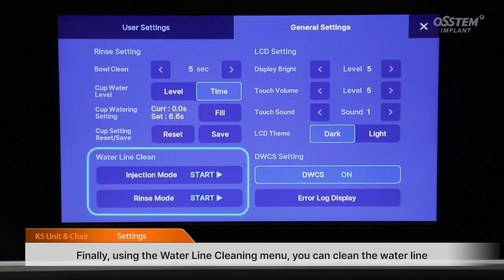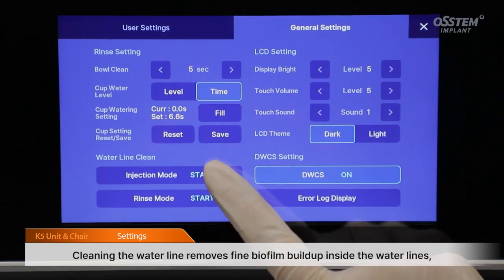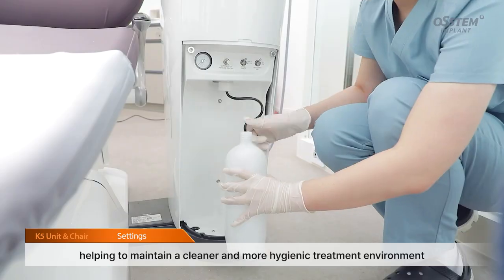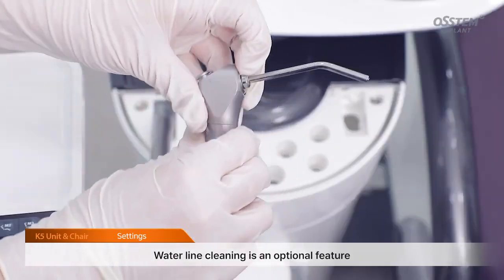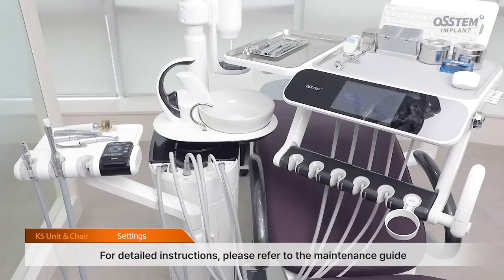Finally, using the water line cleaning menu, you can clean the water line. Cleaning the water line removes fine biofilm buildup inside the water lines, helping to maintain a cleaner and more hygienic treatment environment. Water line cleaning is an optional feature. For detailed instructions, please refer to the maintenance guide.